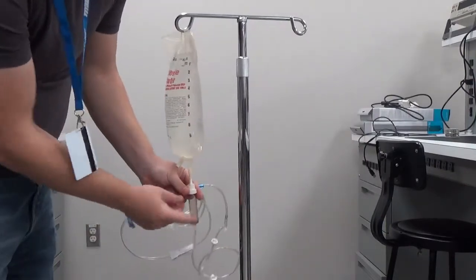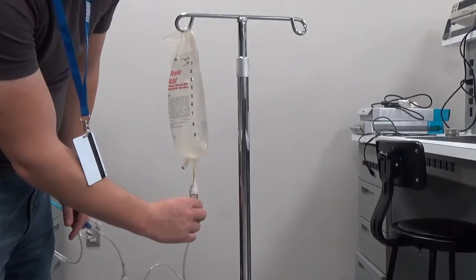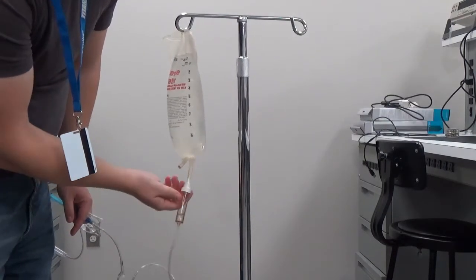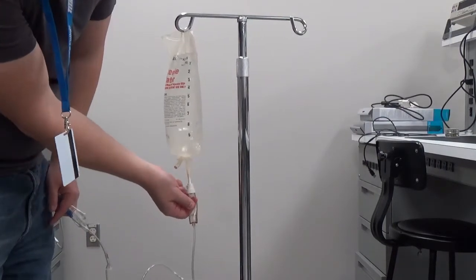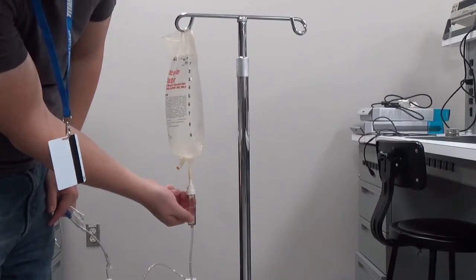At this point there's no water flowing. What you need to do is squeeze the end. You'll see water begins to fill up the chamber here. You want to get it about halfway.